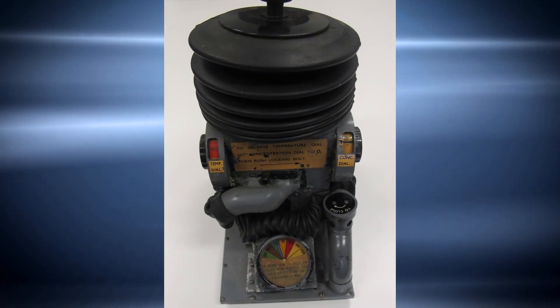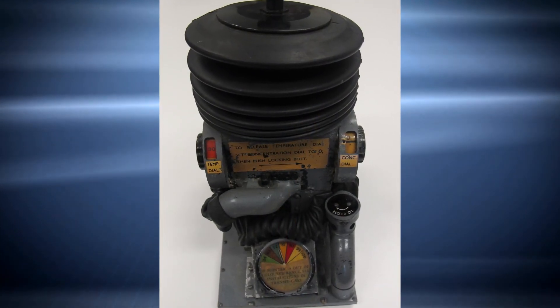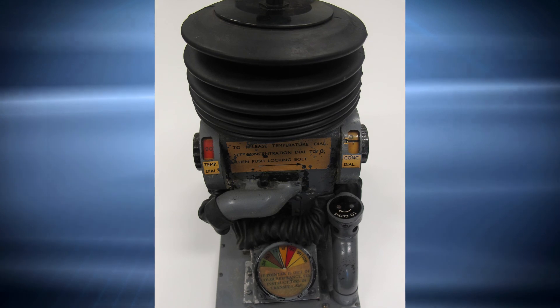This was made to be much lighter and much more transportable, and they realized that often this sort of apparatus was going to be used by people who weren't fully qualified anaesthetists. They were partly trained, enthusiastic people trying to do some good for these injured soldiers.